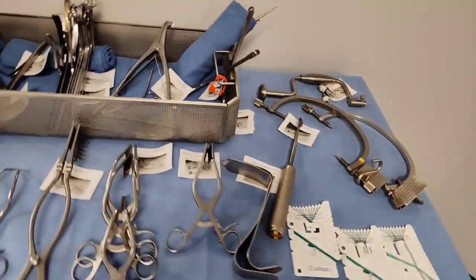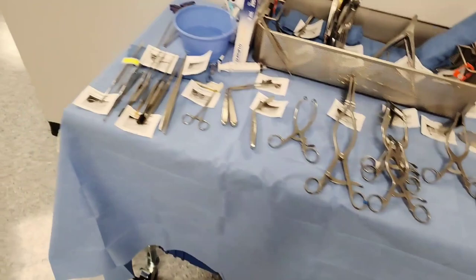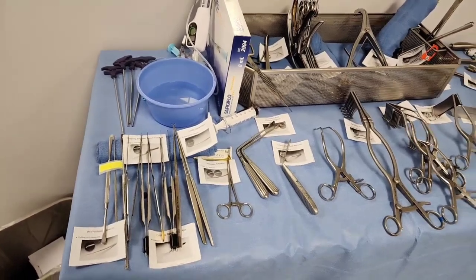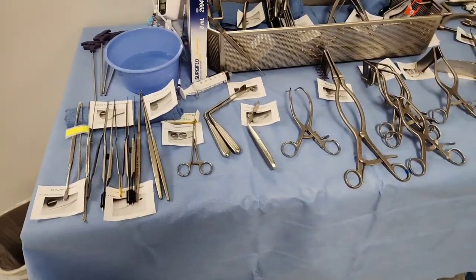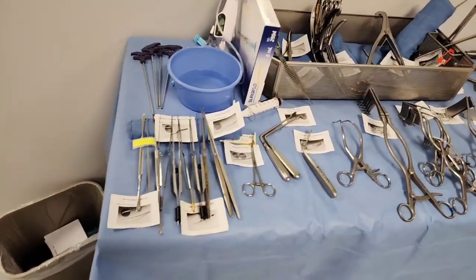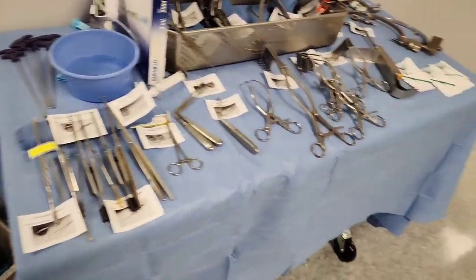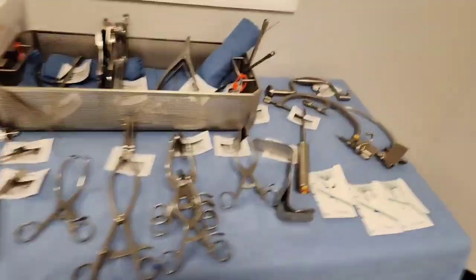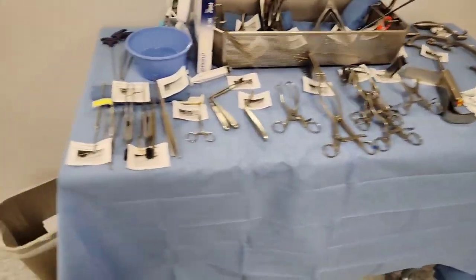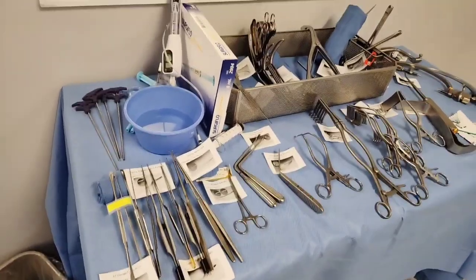As you can see, we have some neurology types of instruments — some supplies, but mainly neuro instruments. They can be dealing with issues with the spinal cord, some impingement on that spinal cord. This is also for my class at Southern Technical College. All I ask the student is to be exposed to these instruments. In externships you'll have a lot more exposure, but half the battle is knowing the name and having an idea what it's used for.